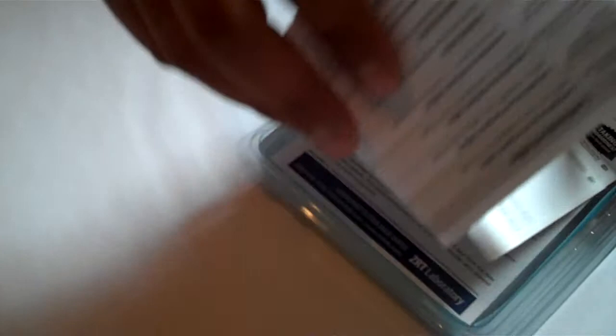A little information sheet, you're not really going to need that. A credit card authorization form, you're not going to need that. You've got some other information on just the various profiles and things of that nature. You're not going to need that either. So you can just toss that to the side.